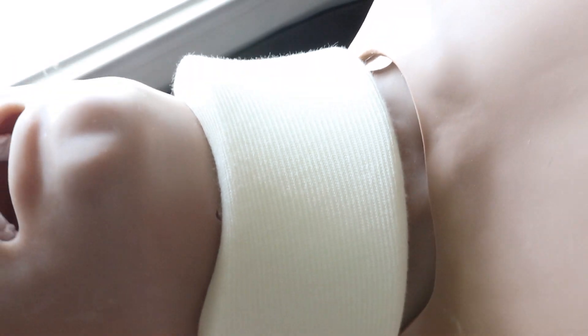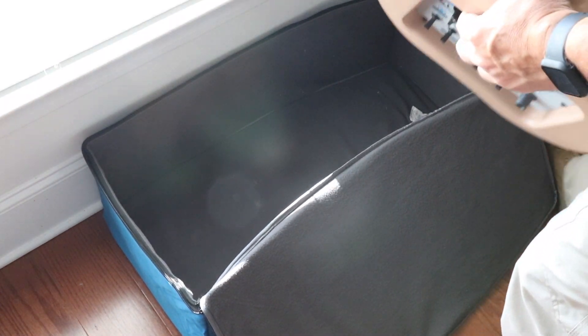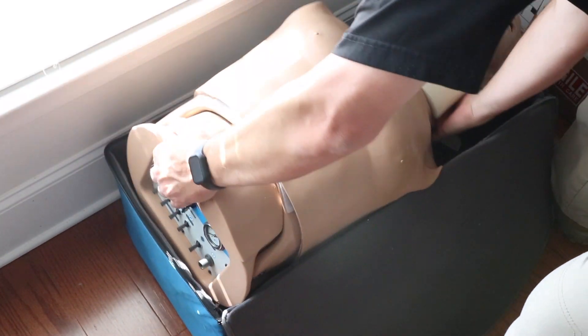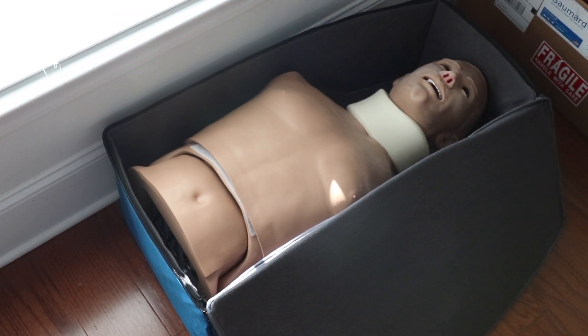If for whatever reason they get dirty, remember to clean it with some kind of mild detergent — something like Joy Dishwashing Detergent. Put your mannequin back in the box and take all the equipment and put it back in there. Now before you put it back in this little bag, make sure the pressure in your chambers has been released — make sure it does not say hold, that it says release, because we do not want this thing stored with that pressure bladder full of air.